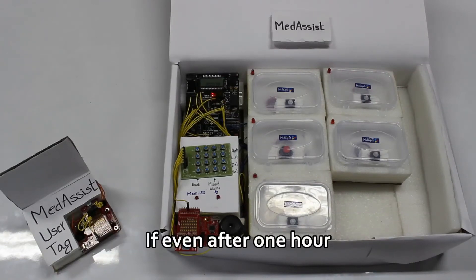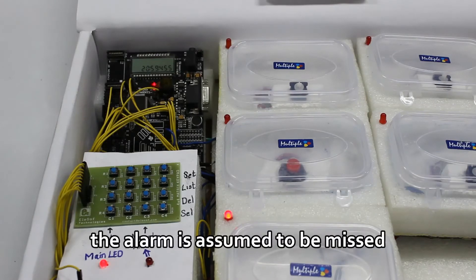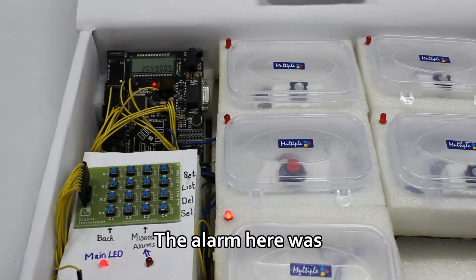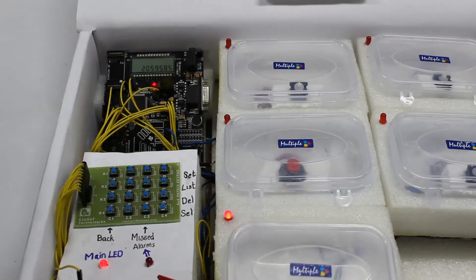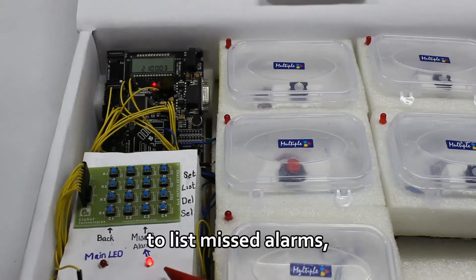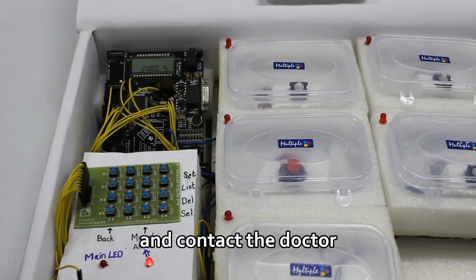If even after one hour the medication is not taken, the alarm is added to the list of missed alarms. After one hour, the alarm is assumed to be missed. The alarm here was to take medicines at 20:00 hours, which we will not take, so we will see the missed alarm LED light up. On pressing the button to list missed alarms, the missed alarms will be displayed. The caretaker can use this to see what medications were not taken and contact the doctor for further instructions.